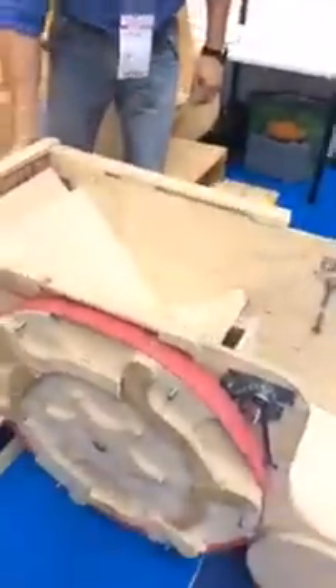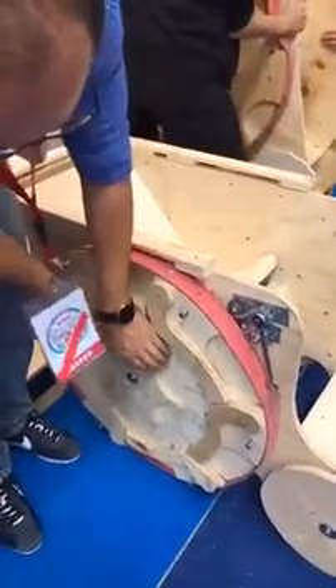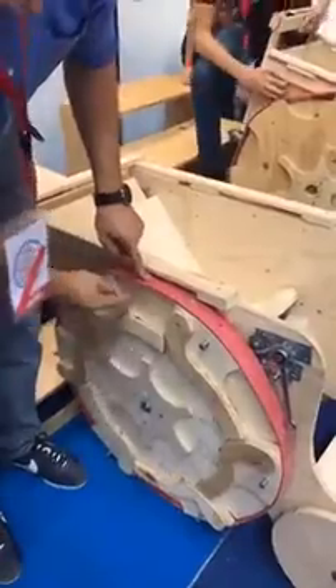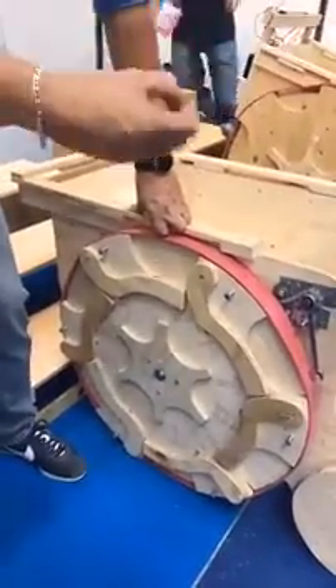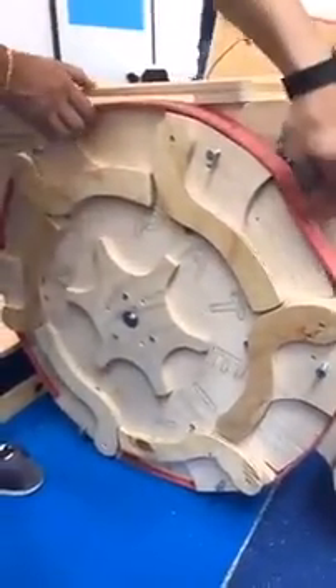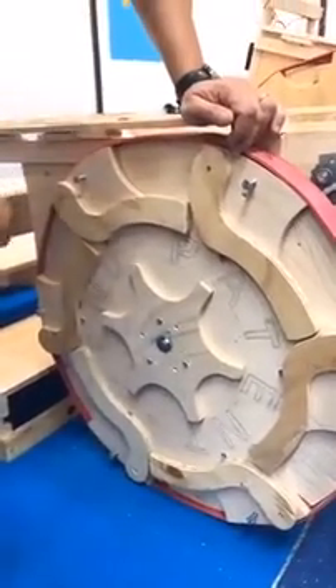It's a manual wheelchair to climb the steps and the stairs. The trick is this. I will solve the problem in this mode. This is a normal wheel. This normal wheel has a little mechanism. This mechanism walks this cam. And this wheel in this mode is a normal wheel. It's a prototype — it's made to look good, but it's only for demonstration. When you change this position, this wheel becomes geared, because this cam goes down, and so you have the possibility to arrive at the stairs.